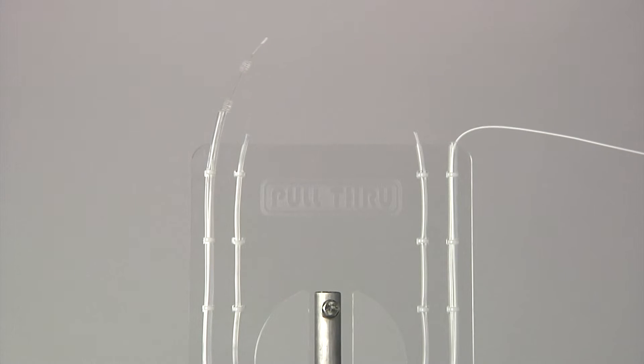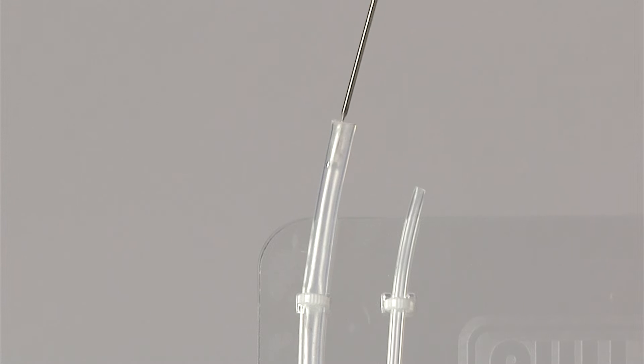Traditional cleaners can pass the obstruction with little or no resistance, leaving the technician with no indication that anything is stuck in the channel. The bristles do not create a seal and are easily deflected by the clip as they pass.